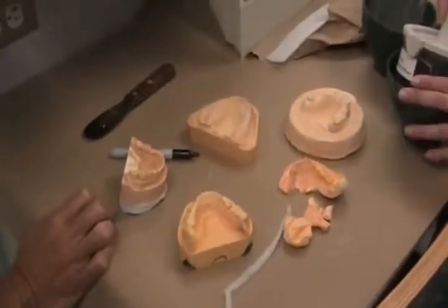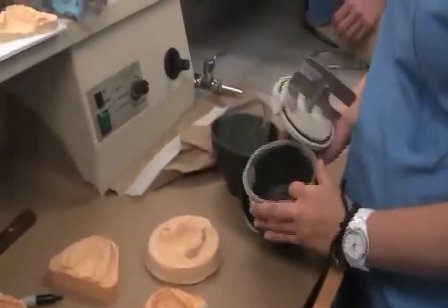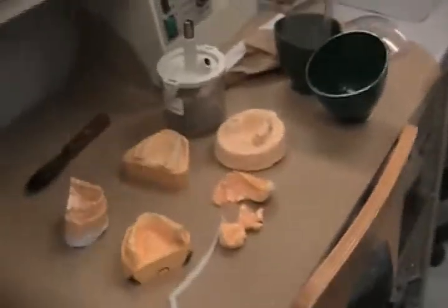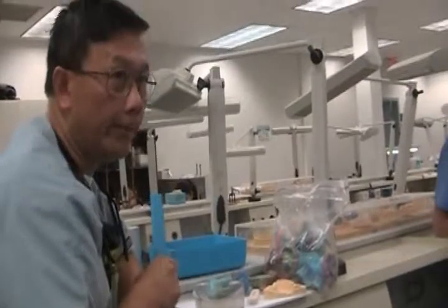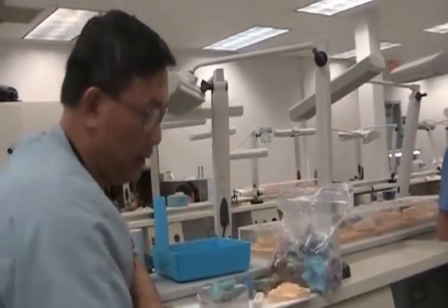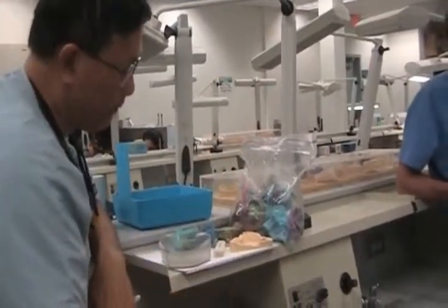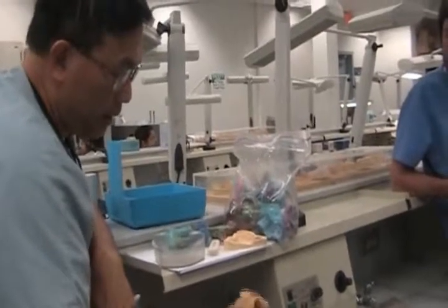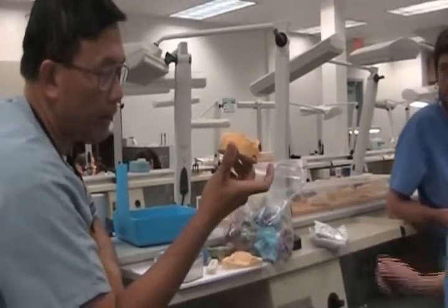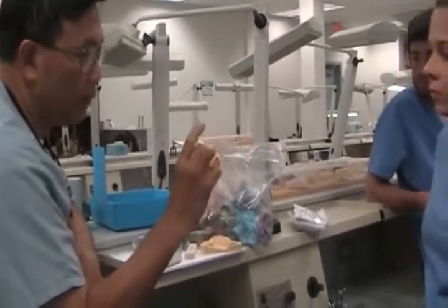Ready to mix? I need two packs of golden. Let's just use golden. Do you know the differences between the different materials and what you use each for? Crown and Bridge have different packs. This is normally using golden, which is what she's got. This is a no-no because you'd be using the Crown and Bridge stone on this one.